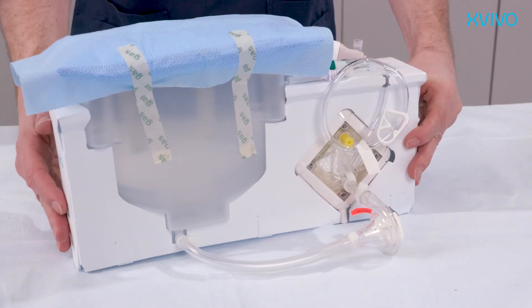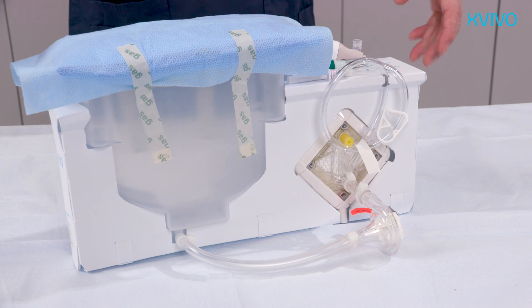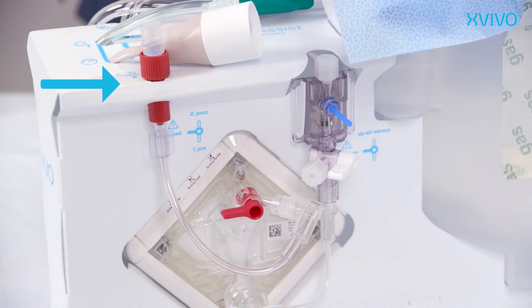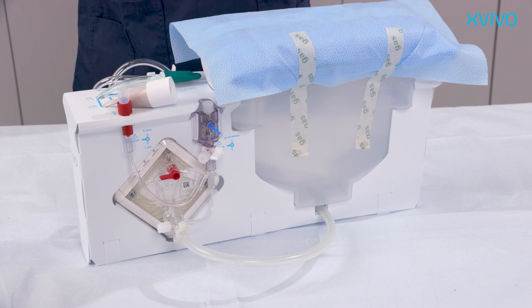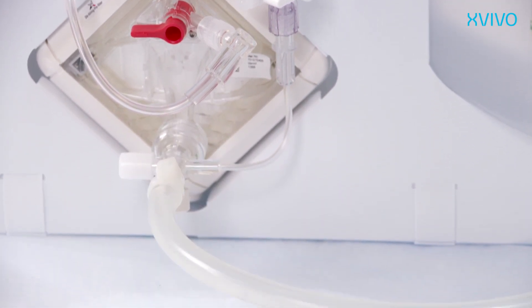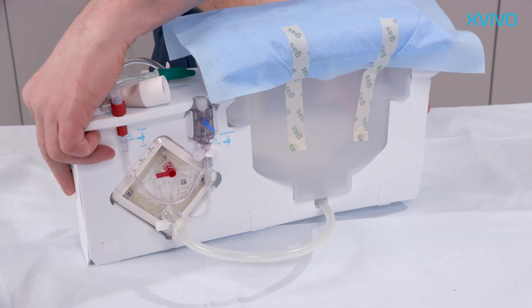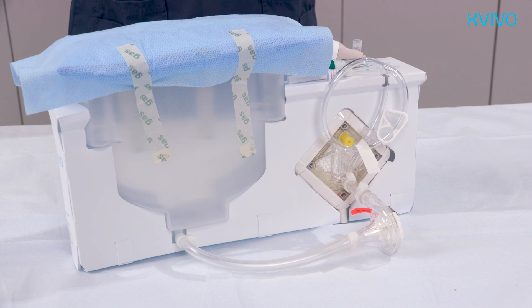The cartridge includes a centrifugal pump head that pumps the perfusate through an oxygenator with built-in arterial filter. The oxygenator is used for active oxygenation to establish high oxygen tension in the perfusion fluid. The red port is used for de-airing of the built-in arterial filter and also serves as a sample port for perfusate. The pressure sensor is connected directly to part of the circuit which leads towards the reservoir. This silicone tube leads from the oxygenator towards the reservoir in which the kidney is stored and perfused. Perfusate drains passively from the kidney and is recirculated towards the pump.